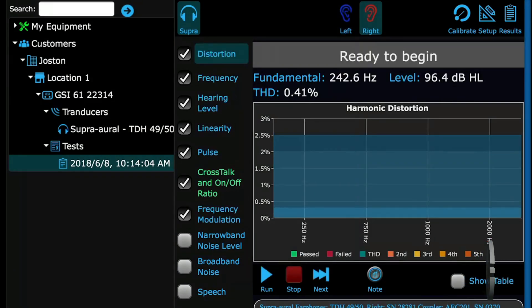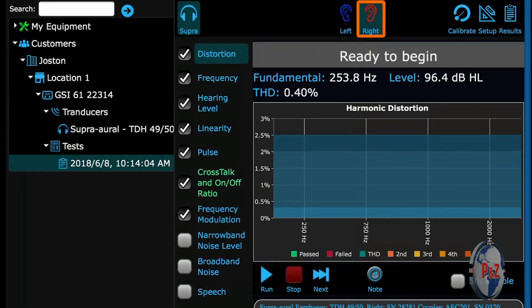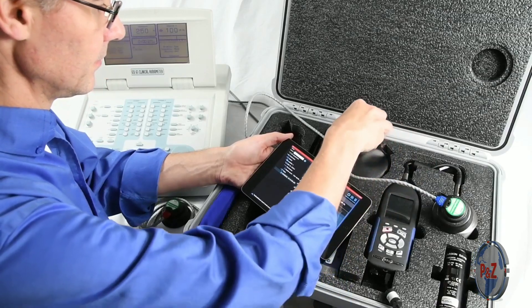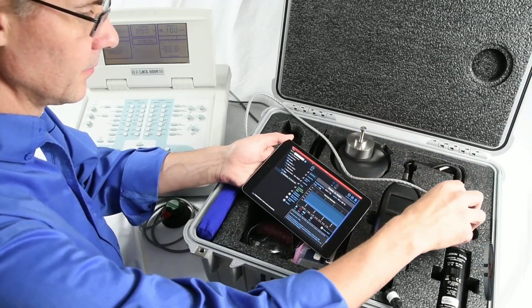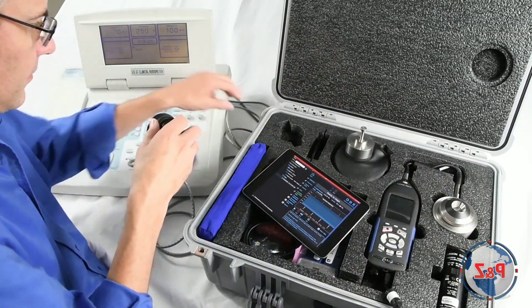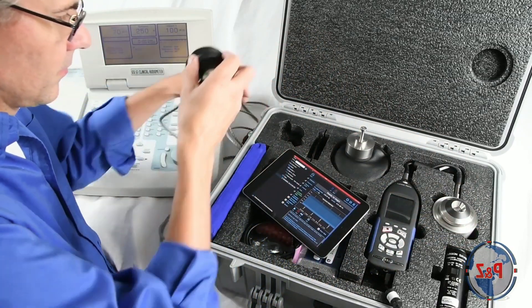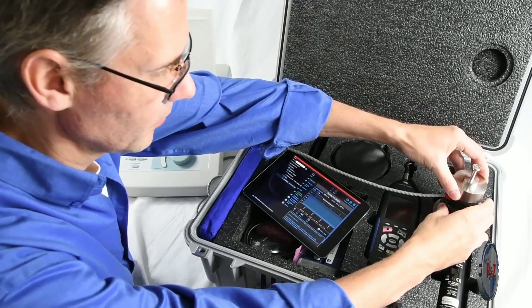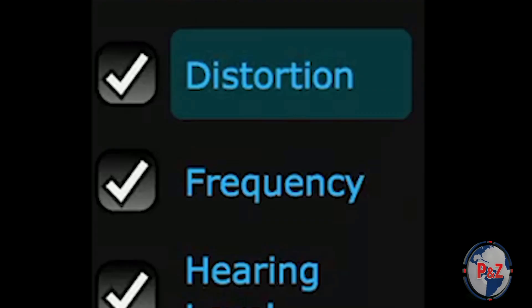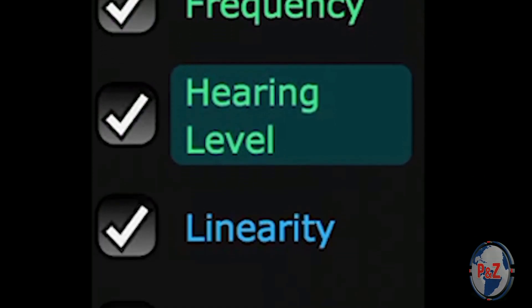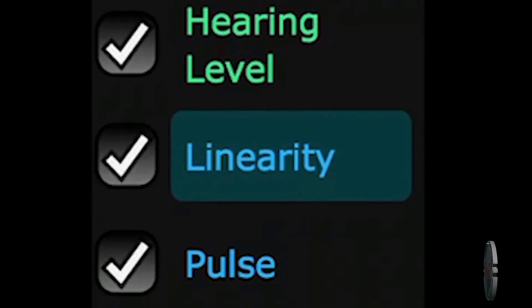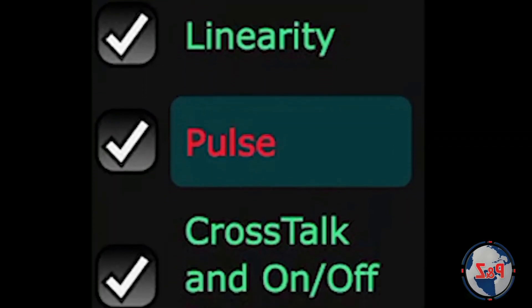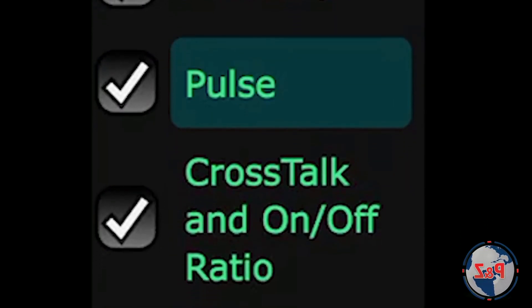The next icon took us to the right side and the top of the test list. So switch transducer sides, then run through the tests. The tests will turn from blue to green if passed or red if any portion of the test has failed.